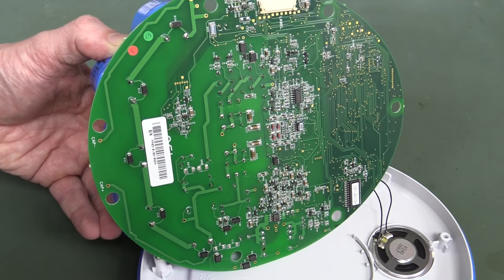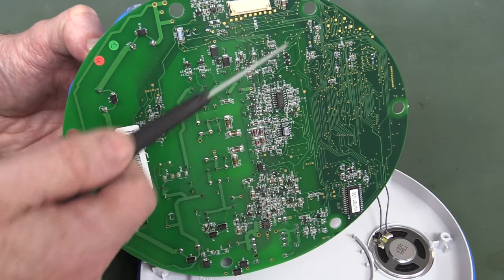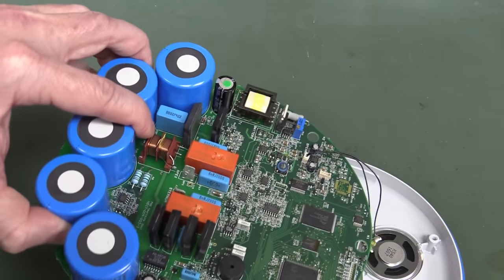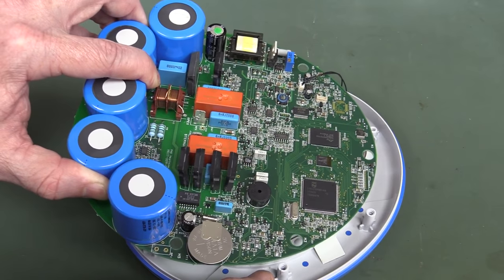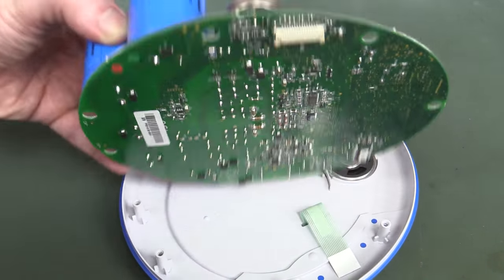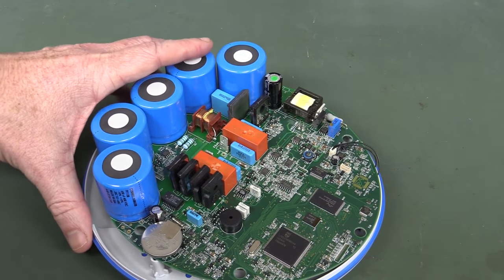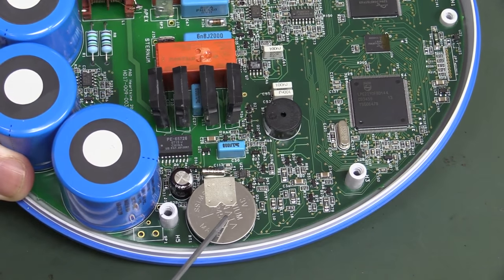The reason there's a diode across each cap is that when you charge caps in series and then discharge them, you don't want differences between capacitors to cause one capacitor to reverse charge, because it could well explode. You don't want your defibrillator exploding, because it'll cause somebody else to have a heart attack and there won't be a second defibrillator around to resuscitate them. You can see the ground plane underneath all the digital stuff, because we're generating high current pulses in here. We've got a couple of big relays in here, and that's an inductor — I thought it was a transformer for a second.